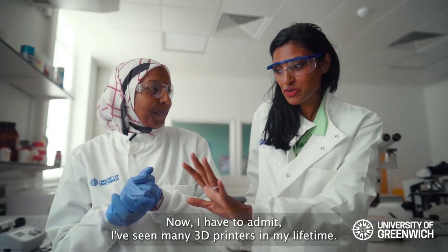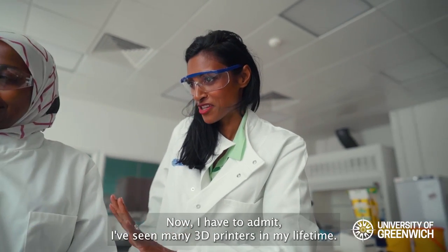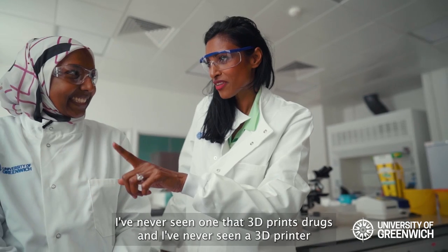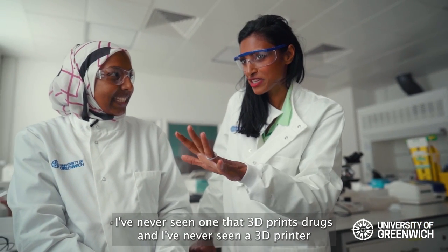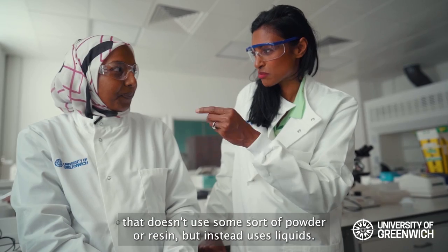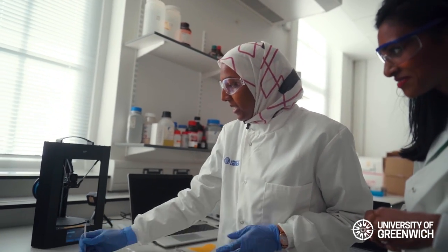I have to admit, I've seen many 3D printers in my lifetime. I've never seen one that 3D prints drugs, and I've never seen a 3D printer that uses liquid instead of some sort of powder or resin.